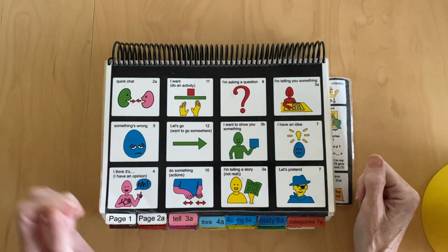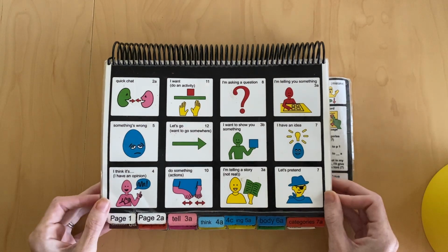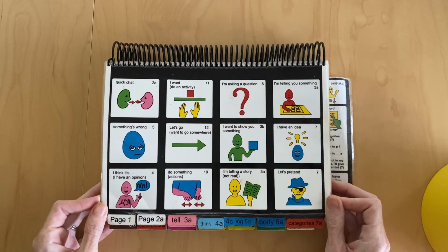Hey everyone, I wanted to take a moment today to give you a close-up of Partner Assisted Auditory plus Visual Scanning, which is what both Angela and Saya use. Saya also uses a high-tech eye gaze pod as well. But this is a little bit different than the direct selection templates that are currently available. So I just wanted to give you a little insight into how this works.